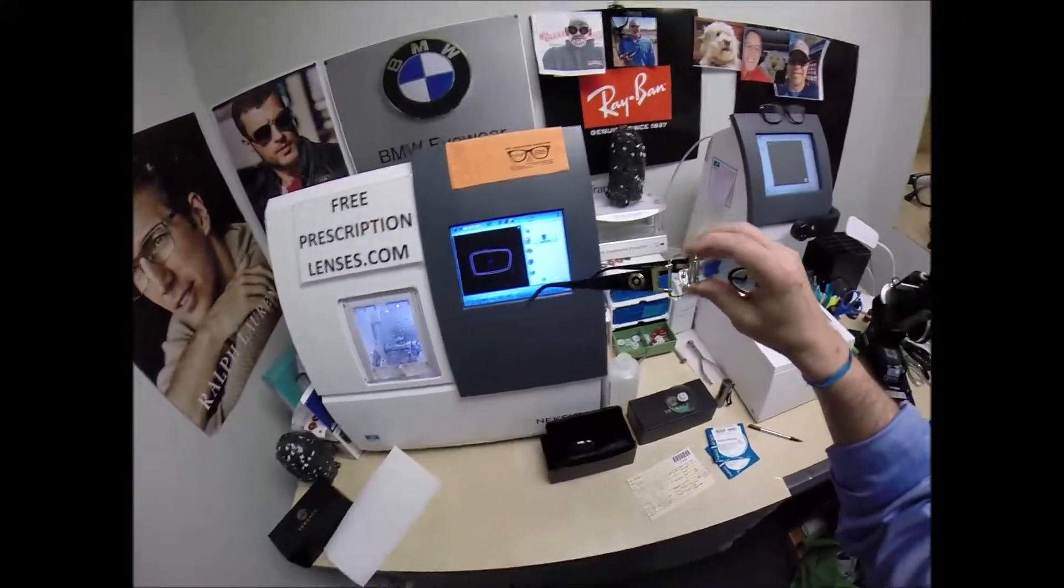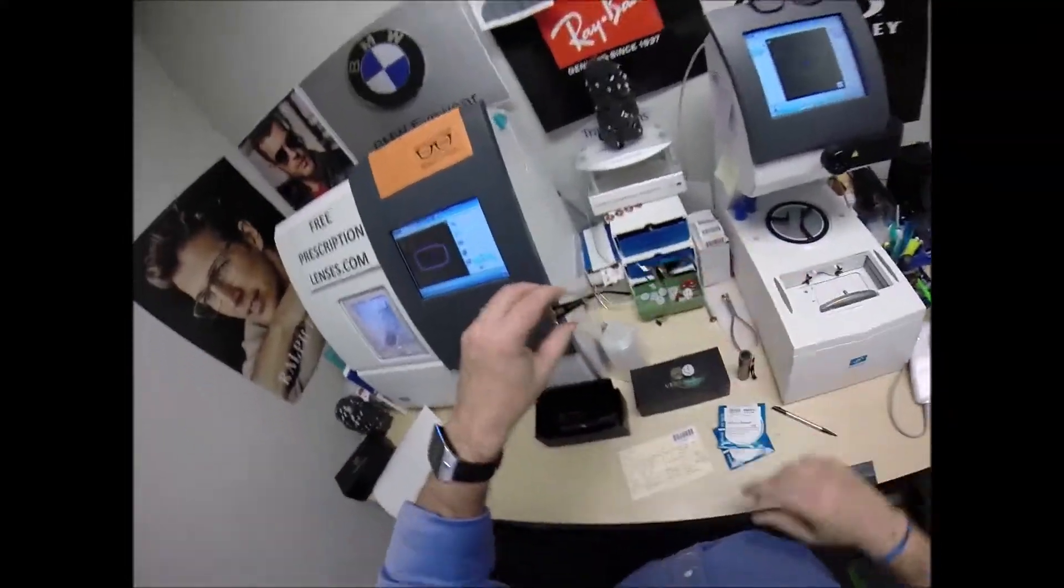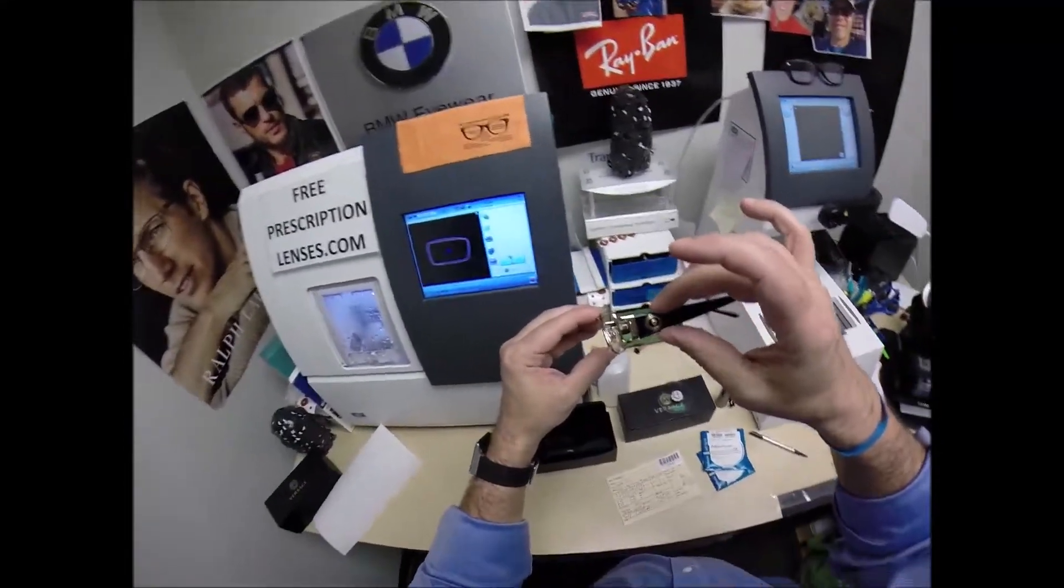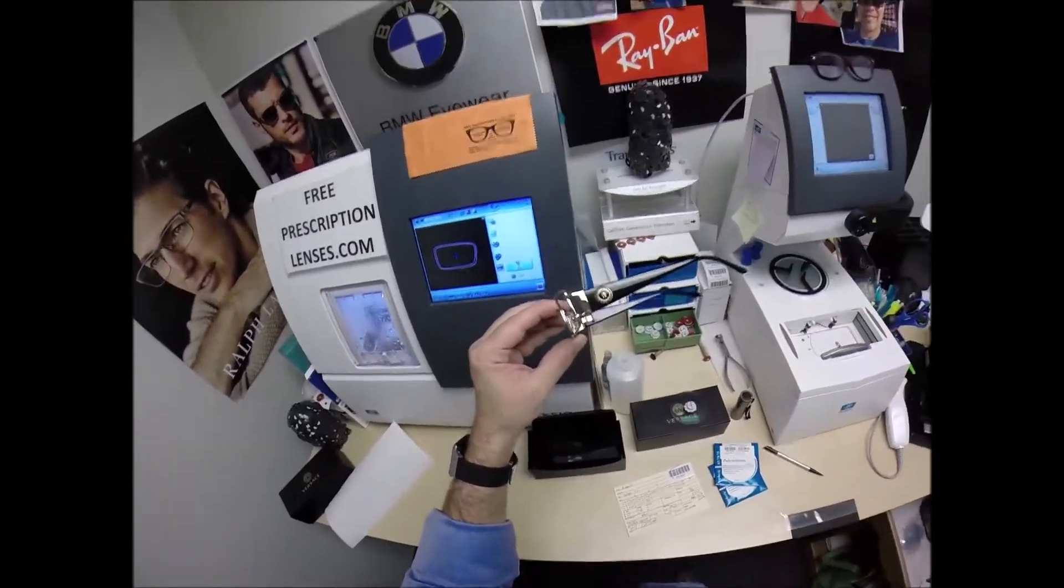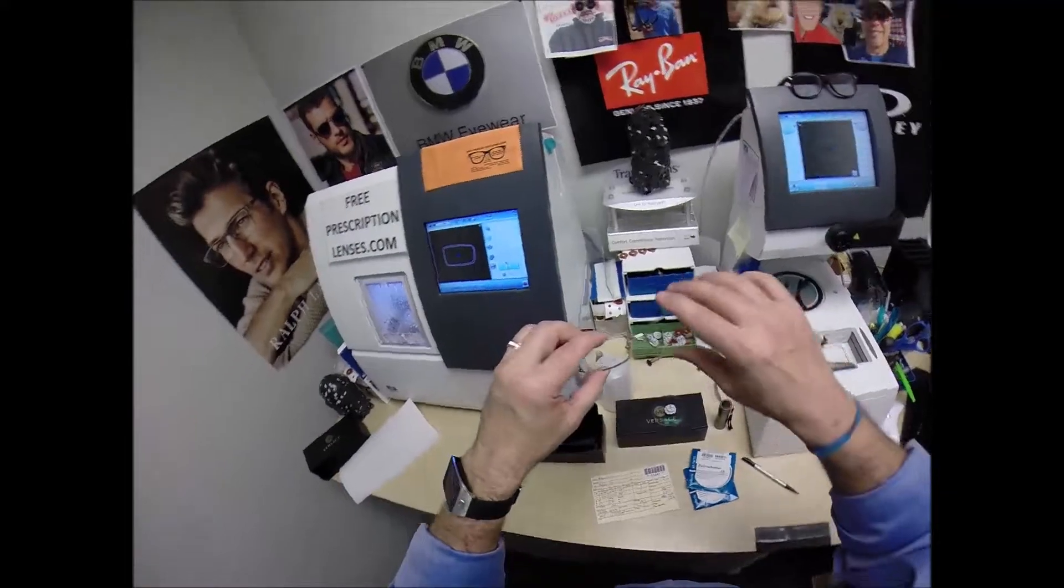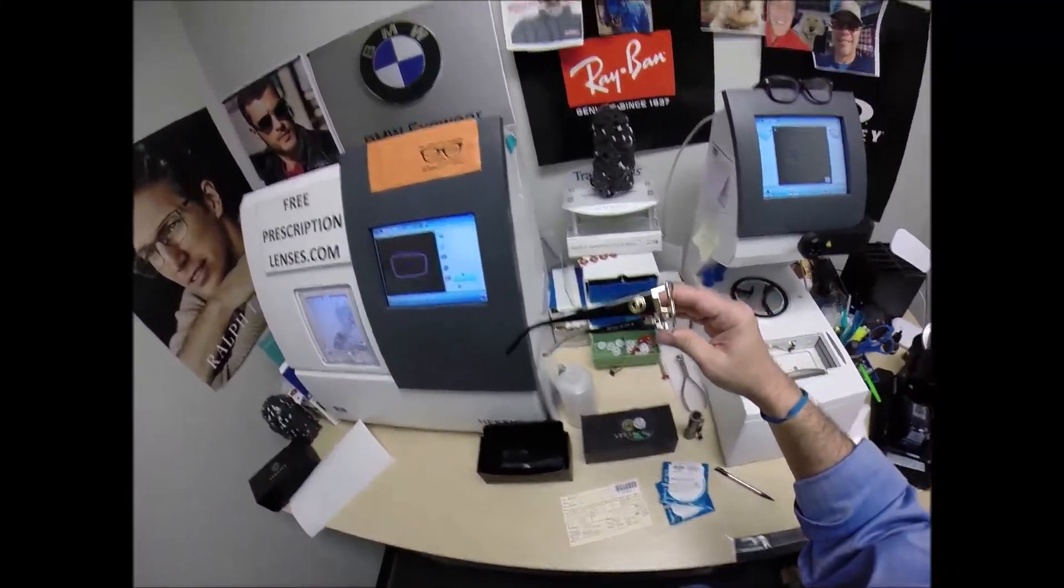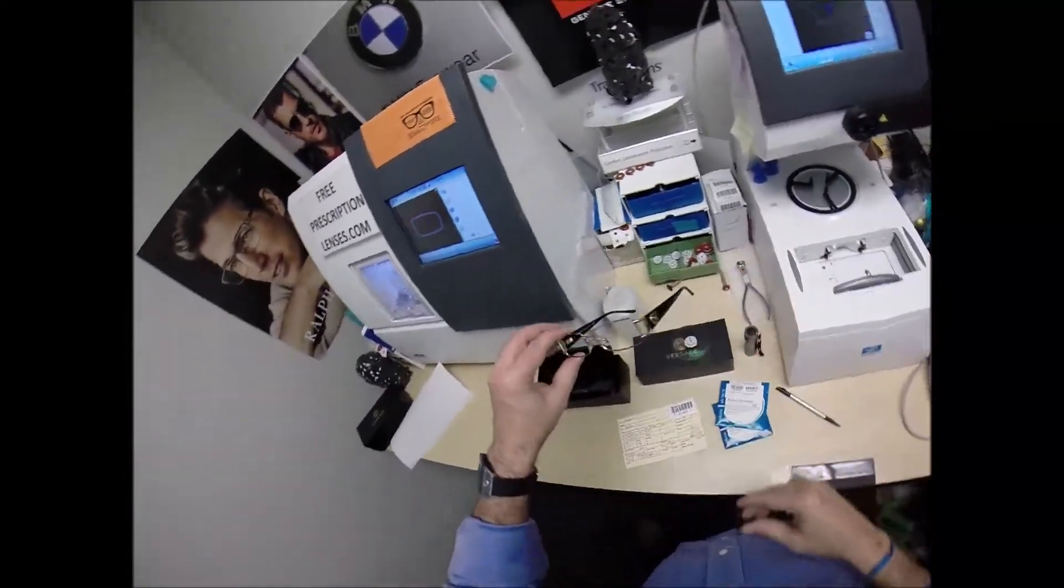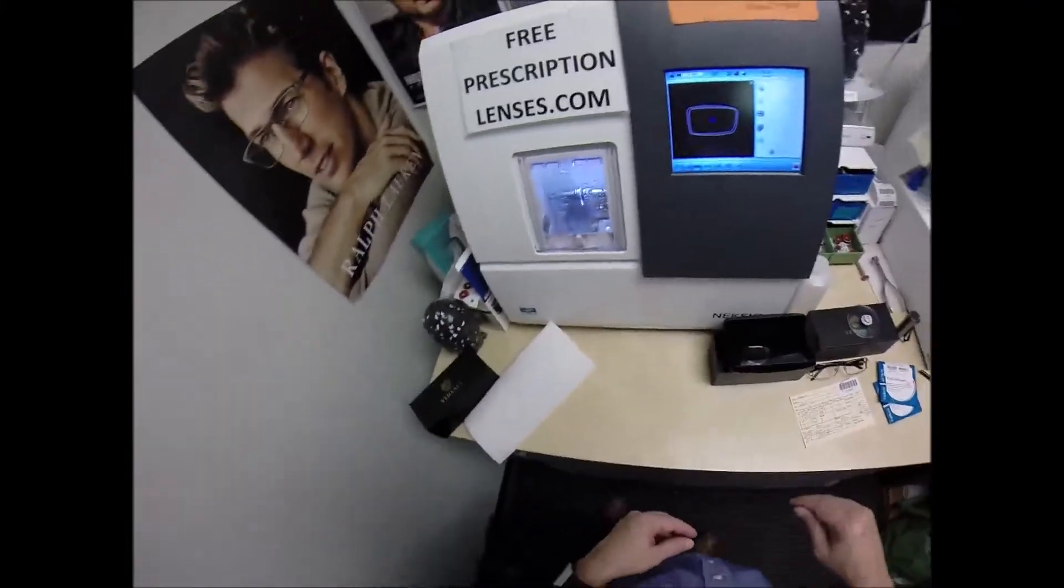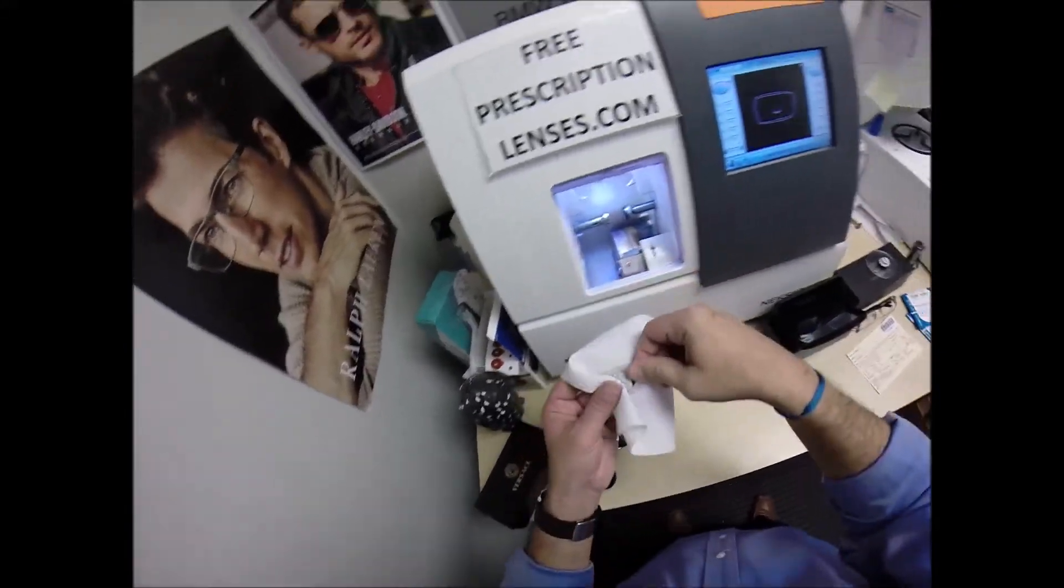Now this is, I want to bring up a point here. When Nellie, Roberts' love of his life, contacted me, she says this is listed as a women's frame. True that, but I have sold more of these to men. In fact, the 1163B, which is all blinged out, I have sold not only more to men, but to the most thugged out gangsters you could ever possibly imagine. So don't be bothered by this being listed as a women's frame. It is unisex.